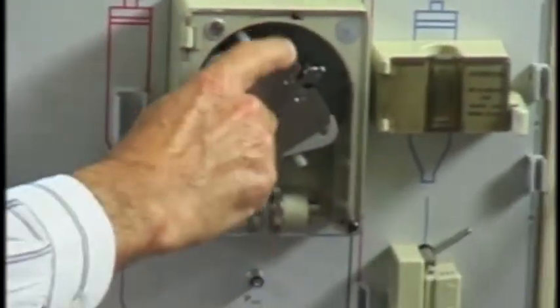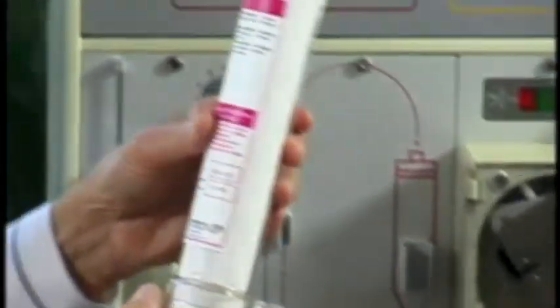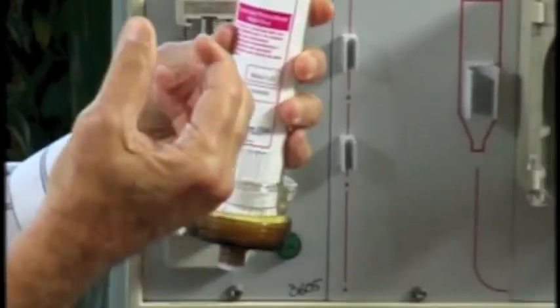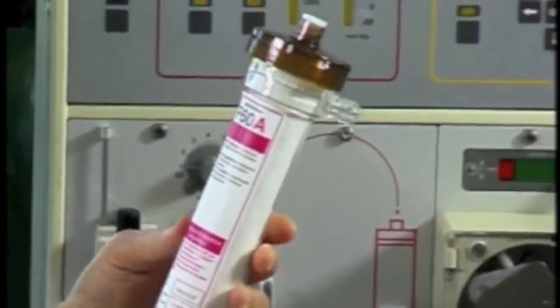Thanks for joining us, Doctor. So, this machine — how does it work? Well, it looks complex, but it's really a very simple machine. This is the pump right here, and the blood is pumped literally through the artificial kidney. And the artificial kidney is simply this structure, which is really hundreds of thousands of hollow fibers.